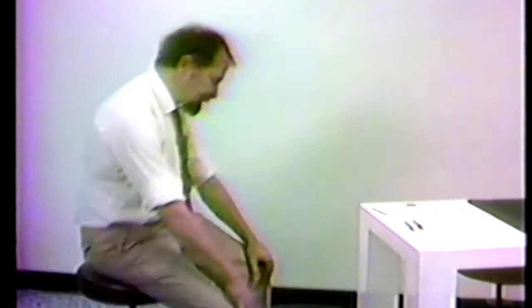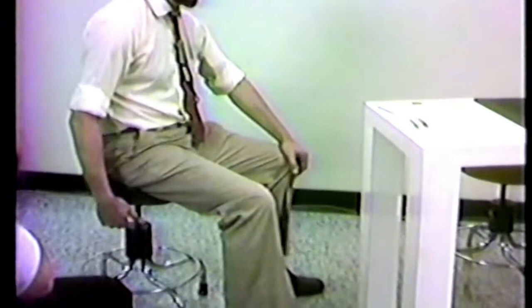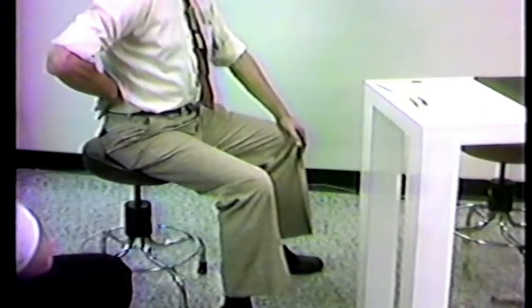Your nurses may think you very picky if you ask them to put your stool just half an inch up or down, but you should ask them to experience microsurgical discomfort for a couple of hours — then they'll realize you're not fussing. A microsurgical stool should have feet, not wheels. You don't want something that has a constant temptation to scoot away behind you. It should be easily adjustable up and down. You don't need arms, foot rests, or a back rest on a microsurgical stool, because that comfort comes from simply assuming a natural posture. If you need those things, something is basically wrong with your body posture which you ought to correct.